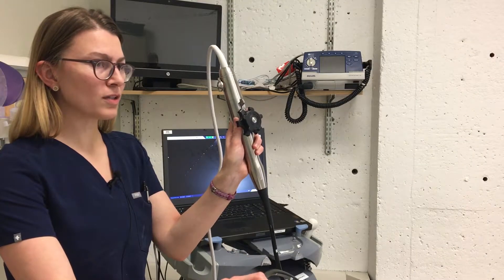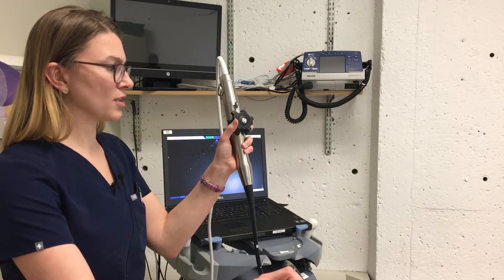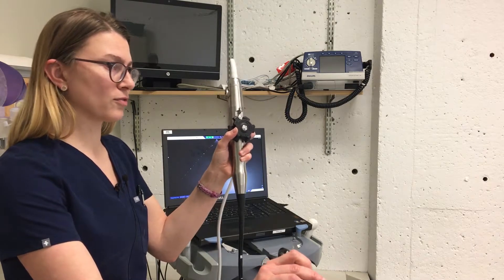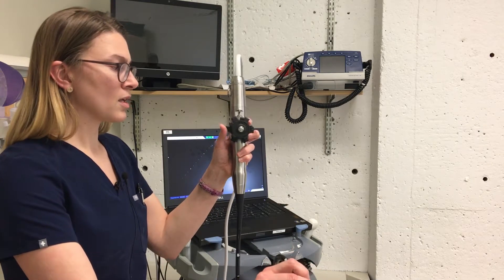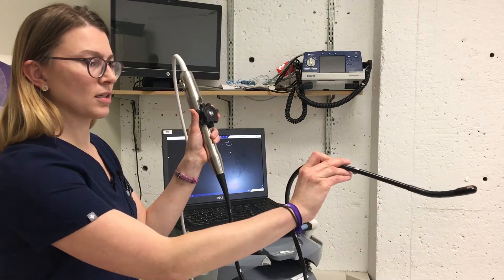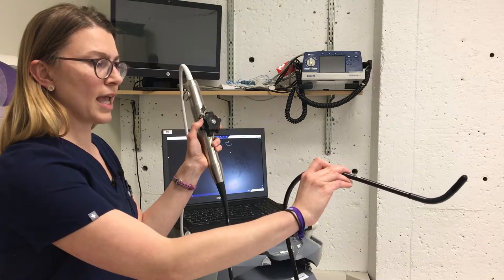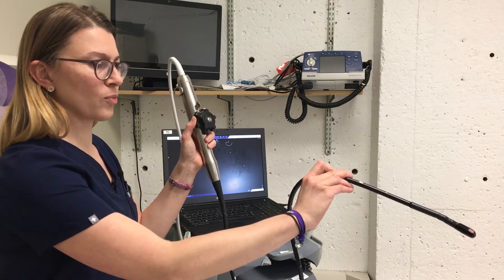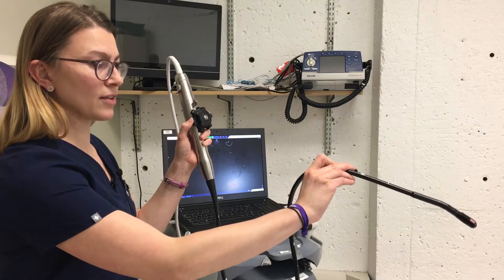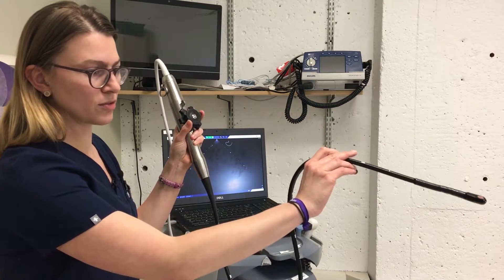As you can see, there's a big wheel and a small wheel. The big wheel is for anteflexion and retroflexion. The small wheel, which we rarely use, is for lateral flexion. When I antreflex, the tip of my probe extends upwards. As I retroflex, the tip of my probe extends downward. Those are the motions we commonly use.